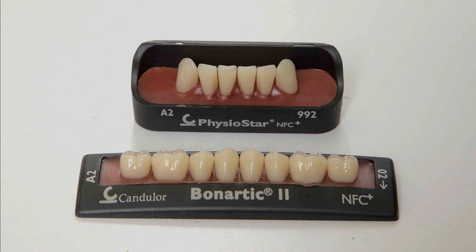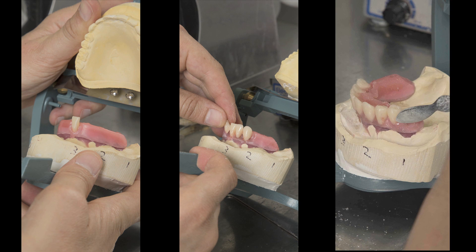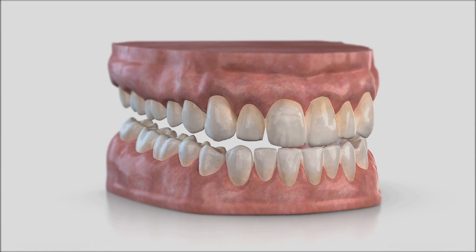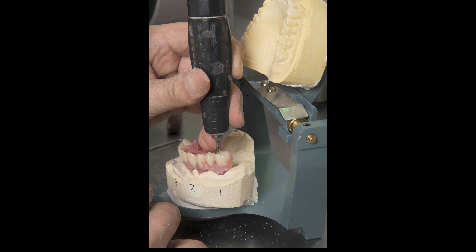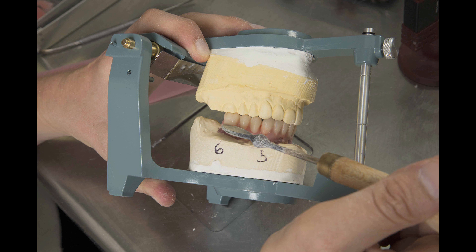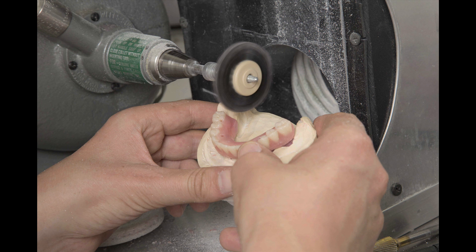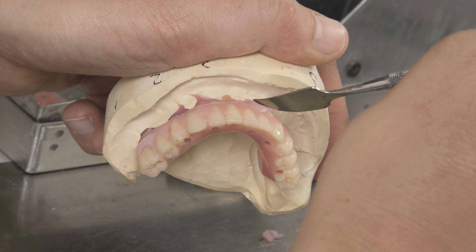After verification of tooth color and size, the process of adding teeth to the facial surface of the bite block begins at the central incisors and proceeds posteriorly. The teeth are set in wax based on generally accepted denture setup guidelines. During this process, protrusive and lateral excursive movements are repeatedly assessed to confirm appropriate tooth position and occlusion. As the individual teeth are positioned on the bite rim, holes may need to be drilled in one or more of the teeth to create access to an underlying implant in the event that the placement of a tooth obscures its position. The gingival margins are clearly defined and any depressions in the facial and lingual walls are evened out. The facial and lingual walls are carved out along the ridge to reduce the overall thickness of the appliance. The surface of the appliance is then brushed and cleaned on a polishing lathe. The final festooning of teeth proceeds as the gingival anatomy is more intricately outlined along the facial and lingual margins.